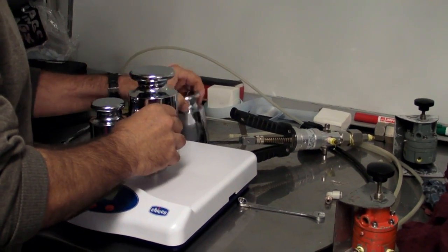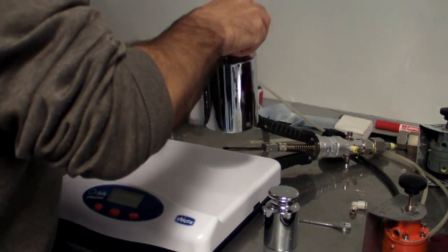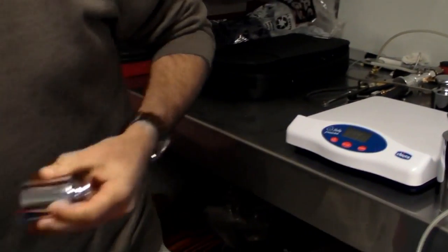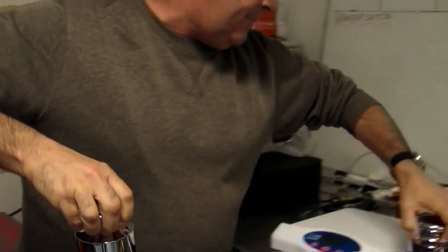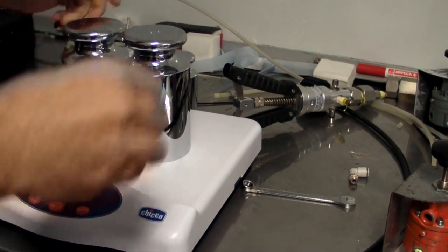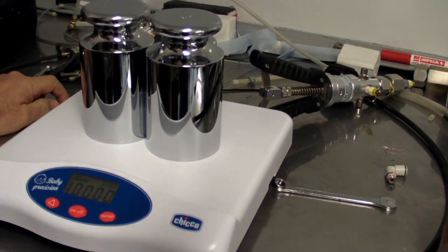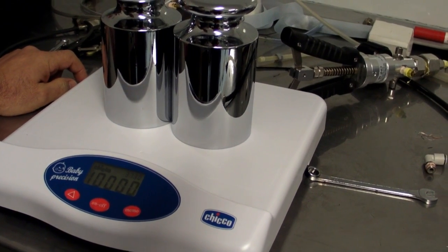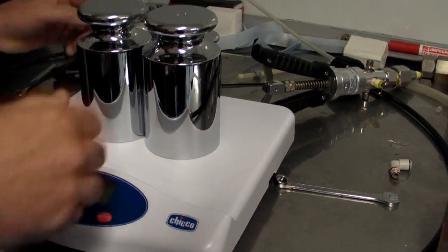We need to go to ten. We're going to use two or three ones — just keep on with one and two. Let's go to ten. Ten kilo weight — that's about how much I need to lose, actually. Oh, look at that — to the least significant digit. Spot on. Beautiful.